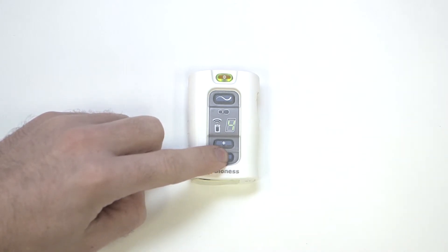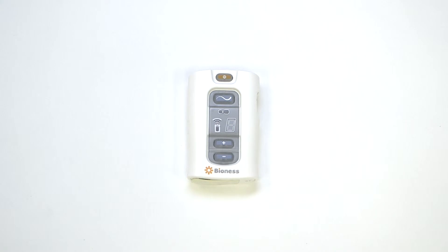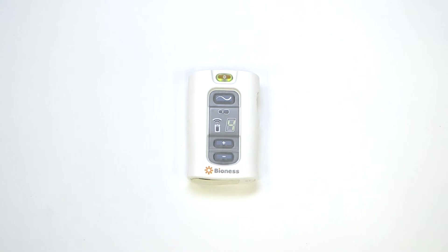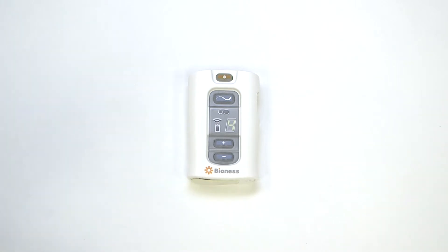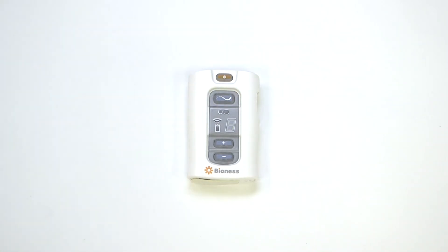The number on the display will blink 3 times to confirm the new default value. The new default value will remain even after the system has powered off.